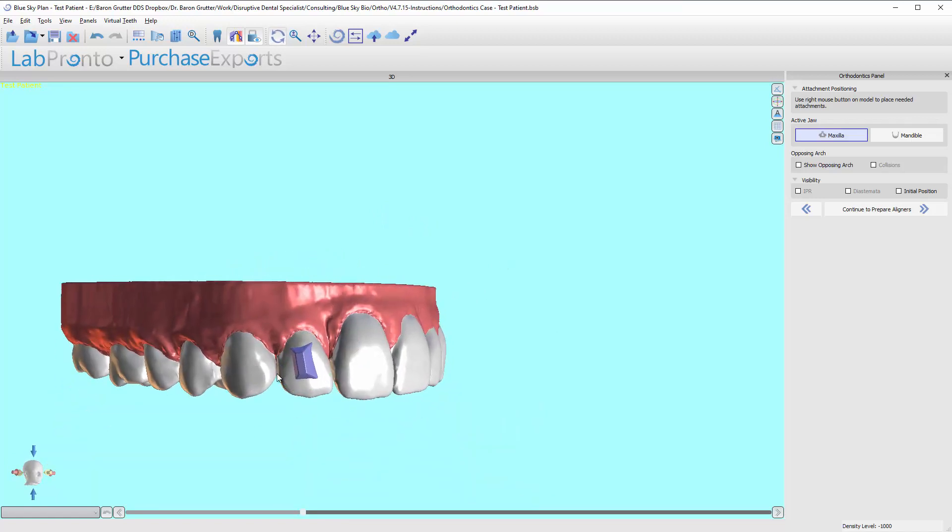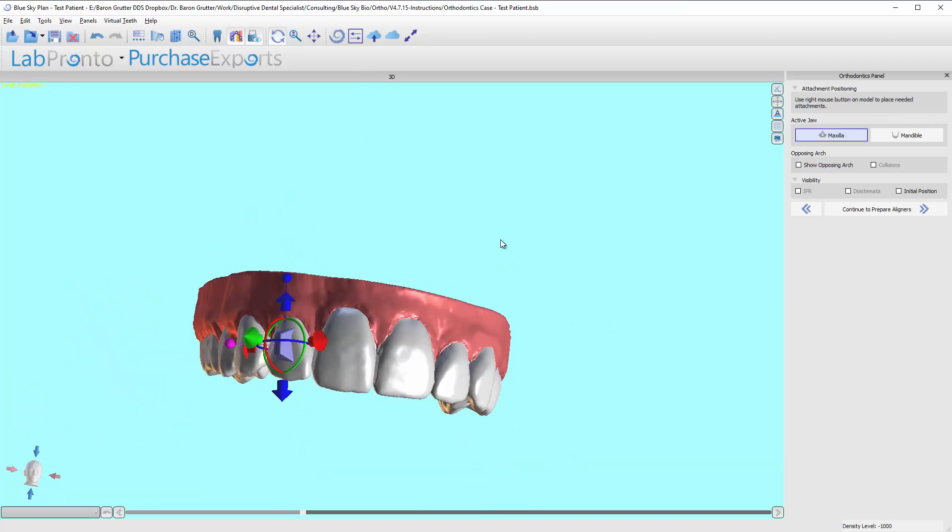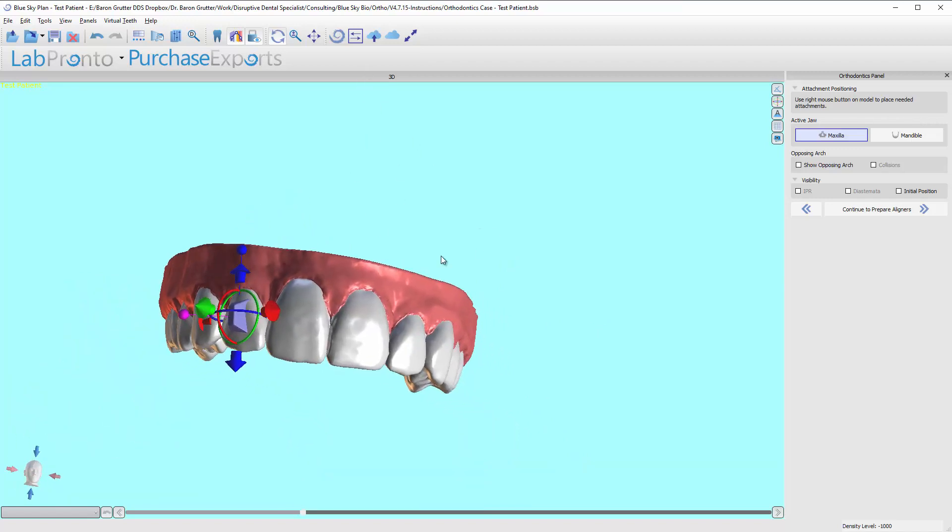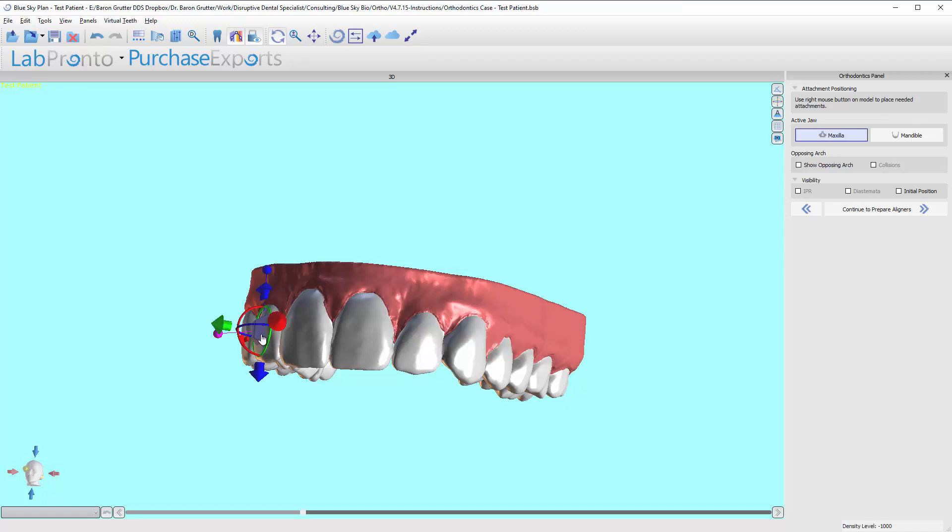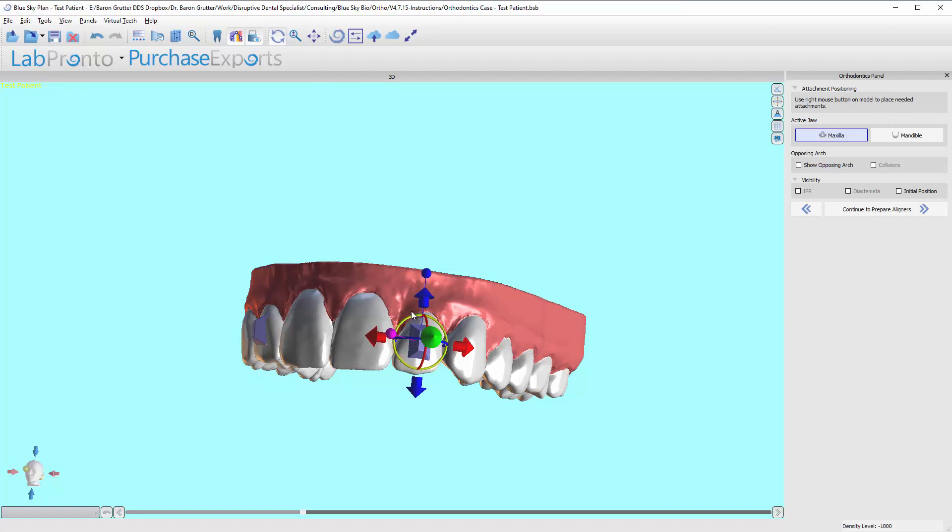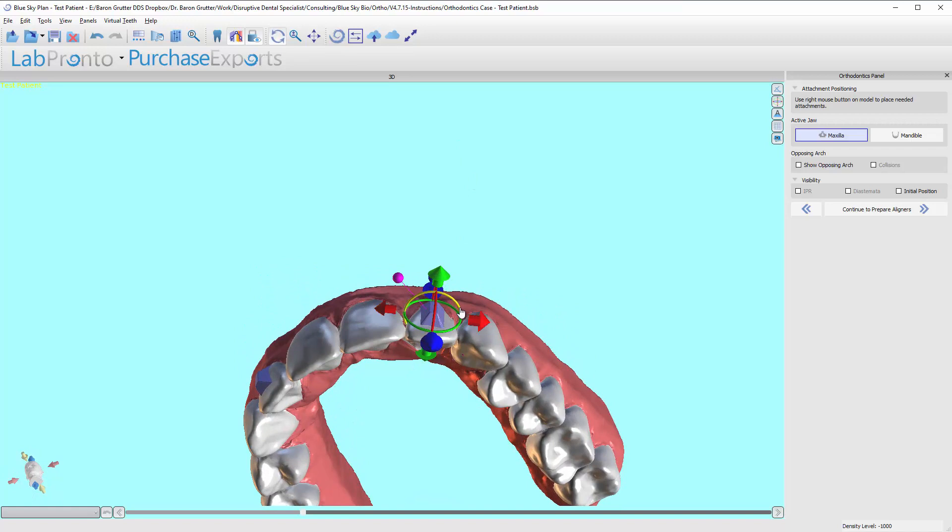But I've got this button positioned, you can see how it sticks off the tooth. If I want, I can just right click and do the same thing. I can right click and say add button, add the same previous button. I can hide them. Or I can right click on this one and say duplicate. And now it's the exact same size as far as all the scaling I did, made it a little bit longer, thicker, whatnot.